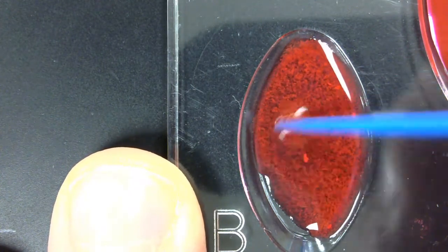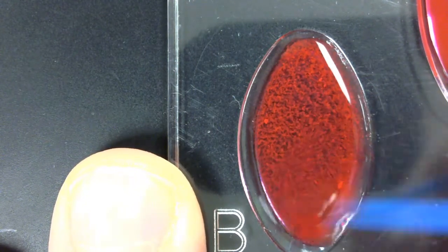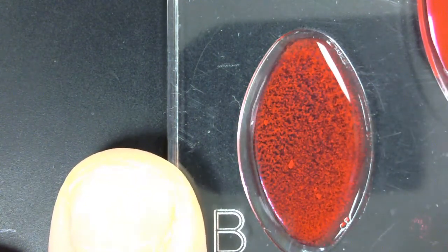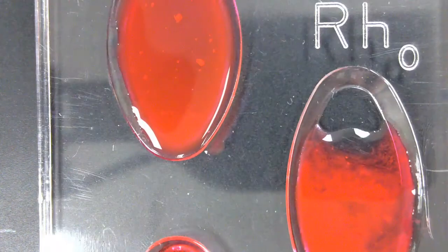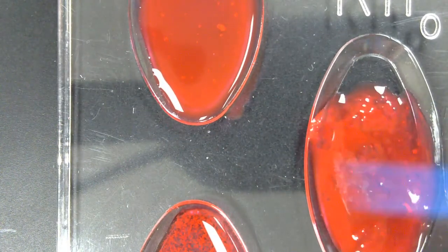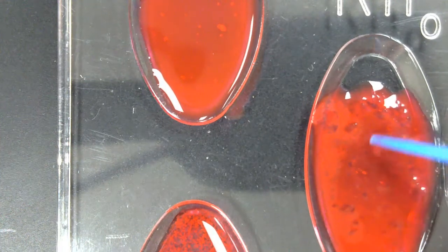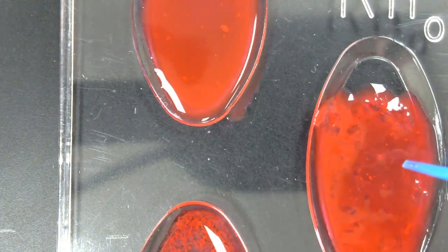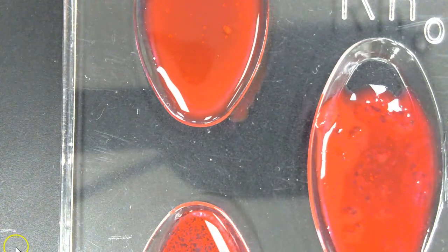But in addition to that, we do see that clumping there, and so there is B present. And let's take a look at RH. This one is definitely clumping. So if we saw a reaction with B and with RH, what blood type is it? Hopefully you came up with B positive. Excellent. Go ahead and write that down.